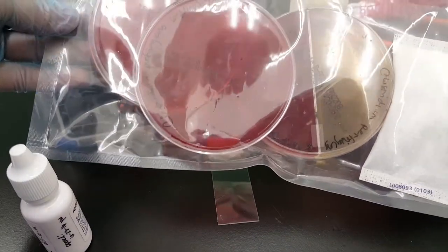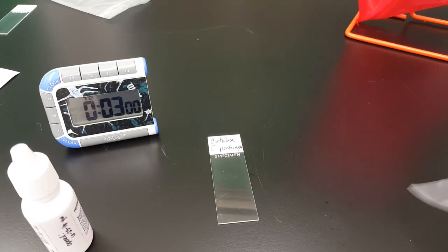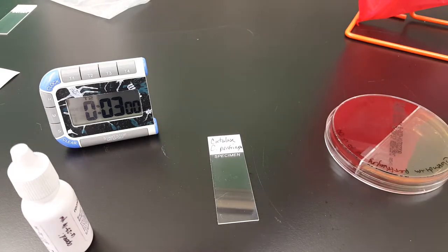We're going to do biochemical testing for Clostridium perfringens. This is a large gram-positive bacilli.